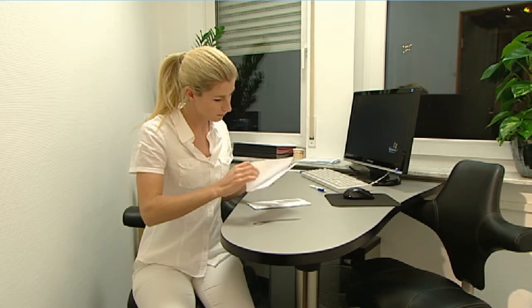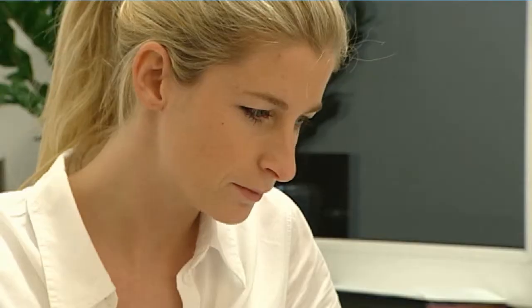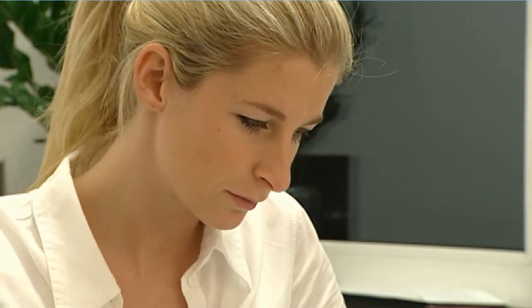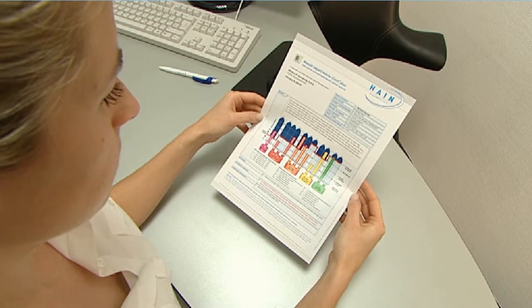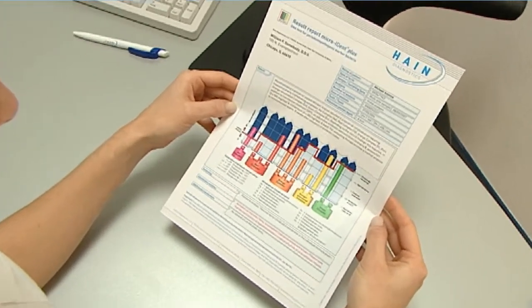The result report and a treatment recommendation based on position papers of dental organizations and scientific papers are coordinated with each other. Thus you see at a glance, clearly and informatively, what you should consider in your choice of treatment.